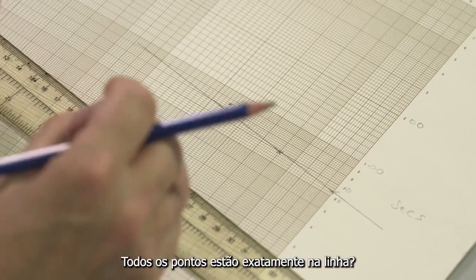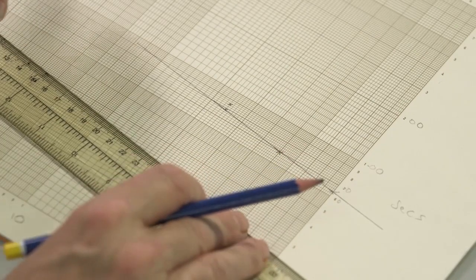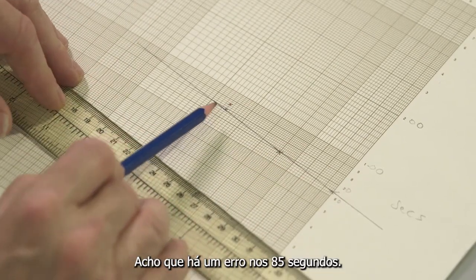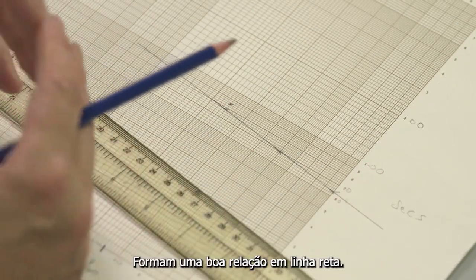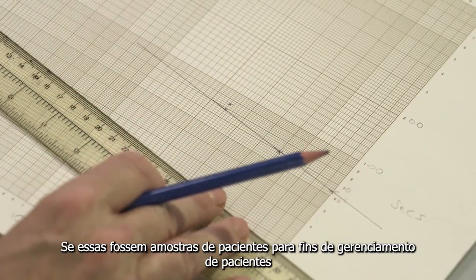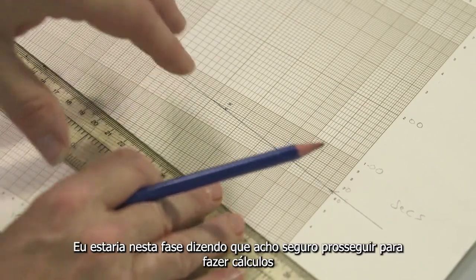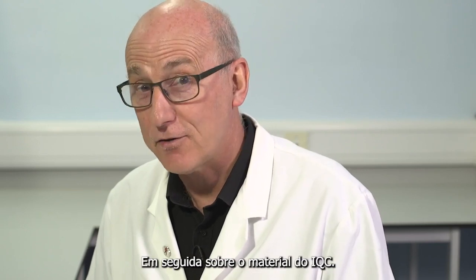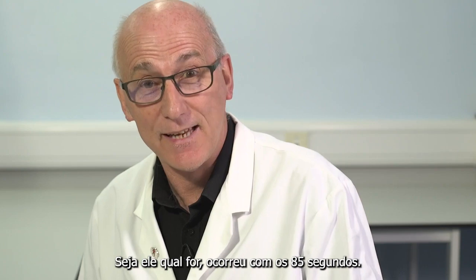Yes. Is every point exactly on the line? No, it's not, and that's typical of this type of assay. I think there's an error in the 85 seconds. 5 of the 6 clotting times taken together form a good straight line relationship. I think that's sufficient. If these were patient samples for patient management purposes, I would be at this stage saying I think it's safe to proceed to make calculations next on the IQC material. So I think the error, whatever it is, has occurred with the 85 seconds.